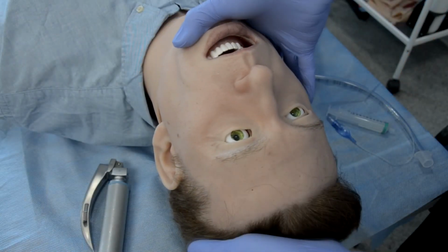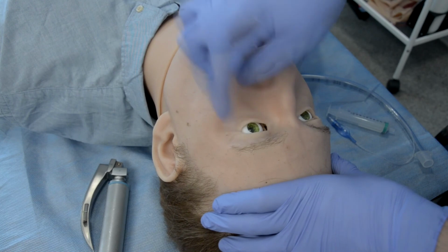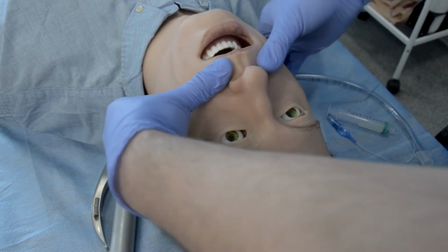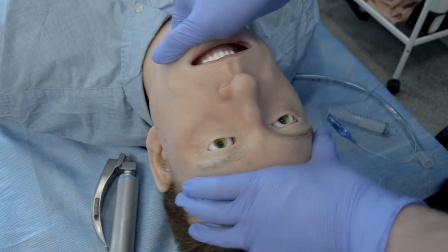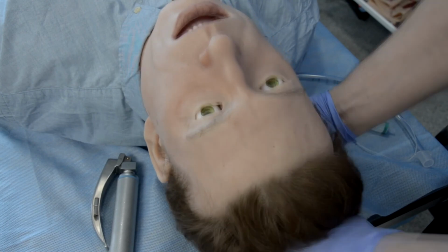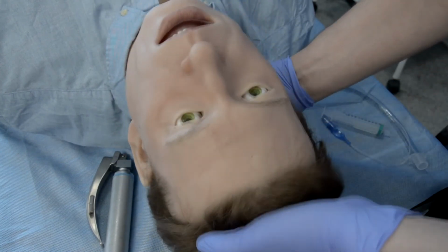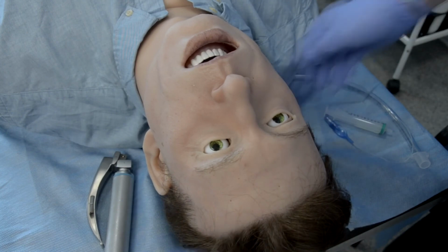Let's begin with the head, and you can see here we have the highly realistic head. You can see pigmentation, pores, blemishes, wrinkles, eyebrows, hair, so everything looks very realistic. The jaw, we get a lot of compliments on the jaw, is nice and soft. The jaw thrust and chin lift maneuvers are very realistic feeling as well. Also, the head is nice and heavy, as it should be, as a real one, and you can see that the neck is soft and flexible, and you can tilt or rotate Leonardo's head, and this enables training, for example, with extrication when you're putting a collar on here, or many other different kinds of training here.